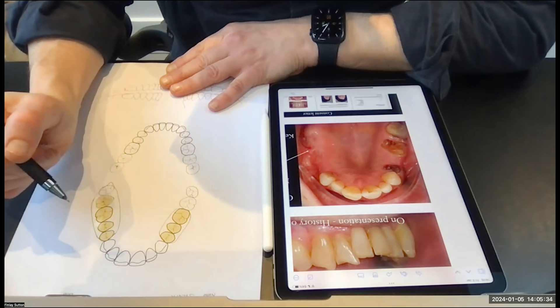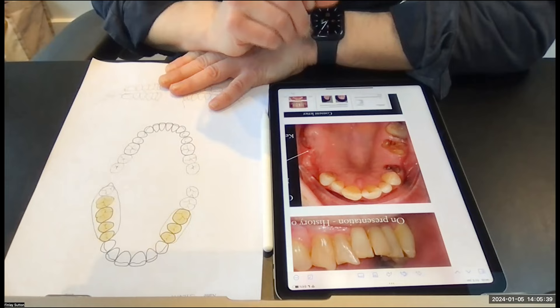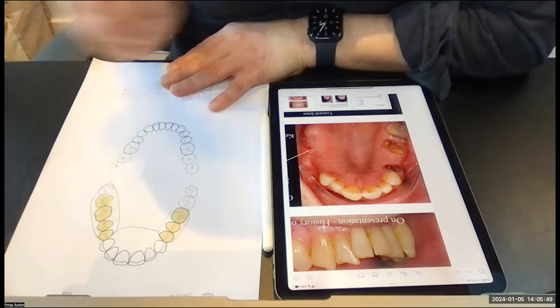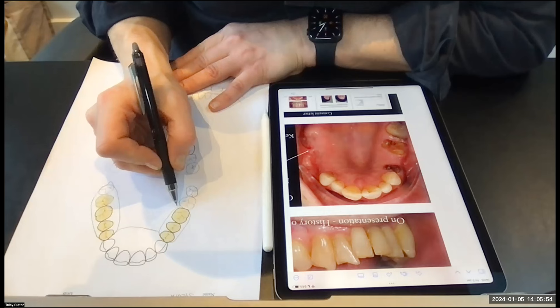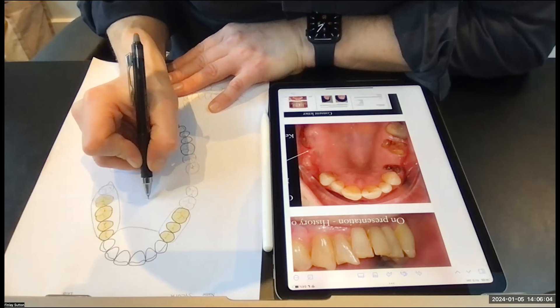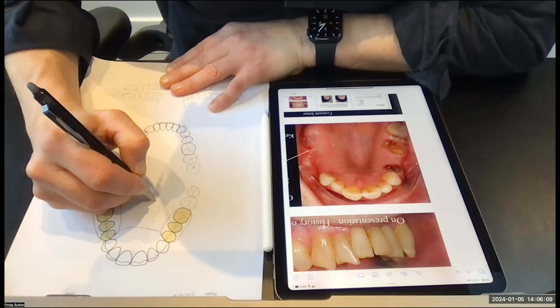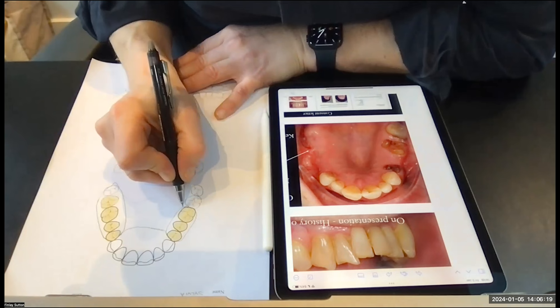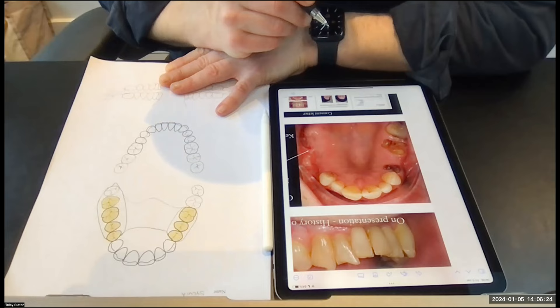I want to now think about major connectors, and I love the palate. The palate's always a great support for a denture, so I'm going to bring that across just here and connect that and that together. Then at the back, the major connector comes all the way across. This is my centre line, and I just like to do a little curve and sweep that into this area — just like that. So that's my major connector.